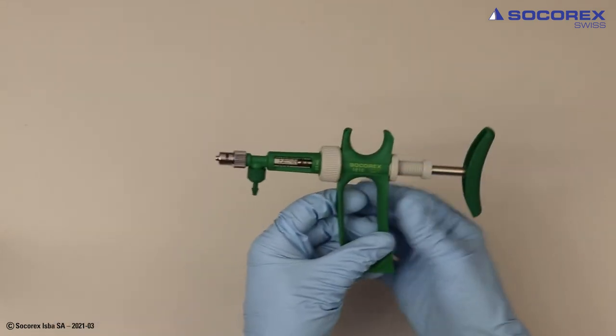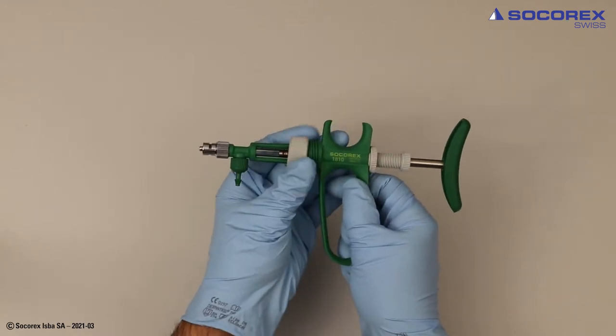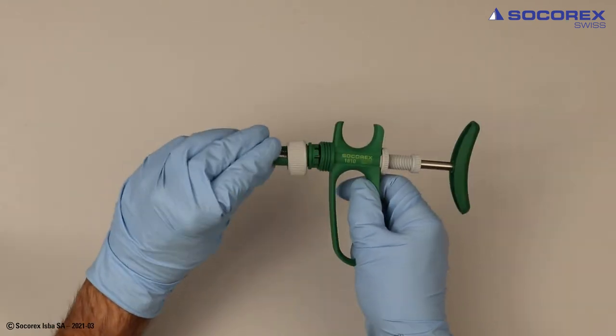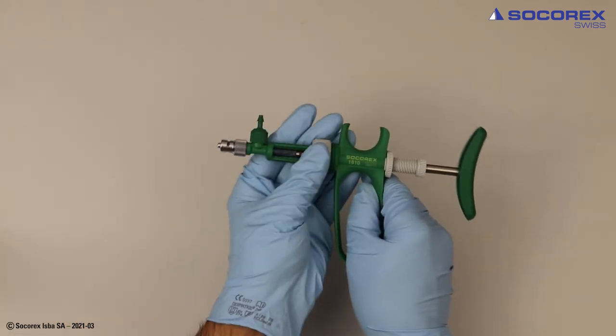In order to get started, select body position by unscrewing the body nut. Adjust body position to one of eight possible angles.